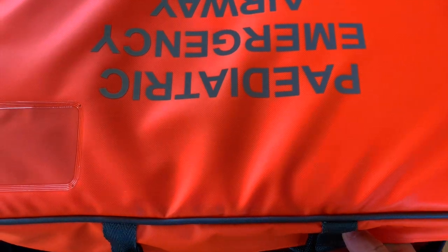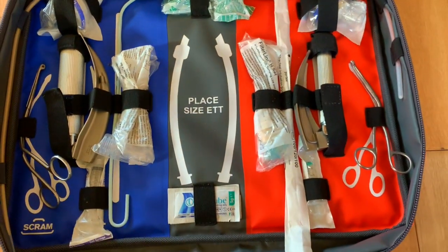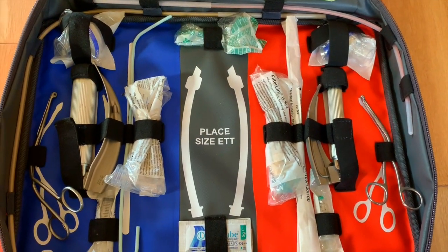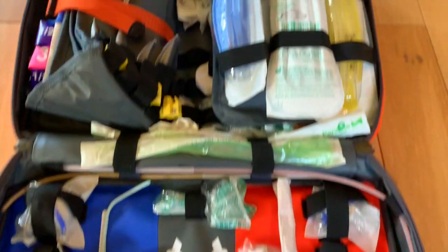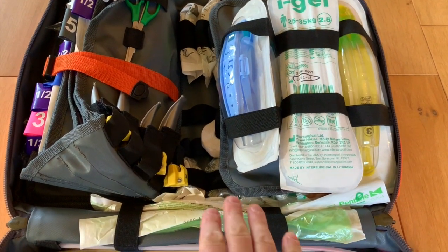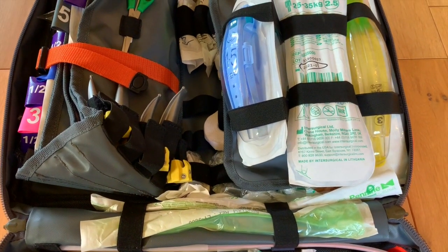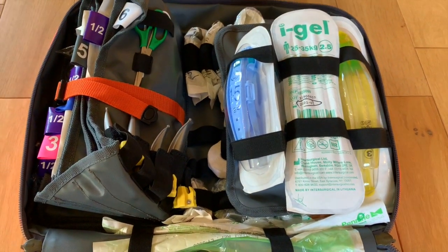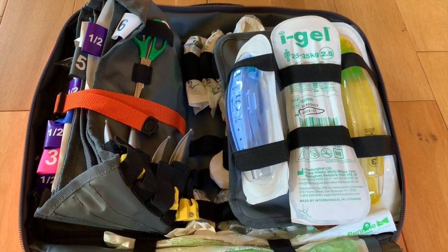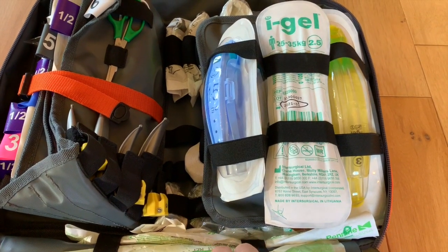As you open Pediatric Scram you're met with two distinctive areas. Firstly the primary work area, which we'll come back to shortly, and then the secondary use area. This area consists of basic airway adjuncts, suction catheters appropriate for the pediatric airway, a selection of endotracheal tubes from a two-and-a-half through to a six, spare blades, and rescue devices.